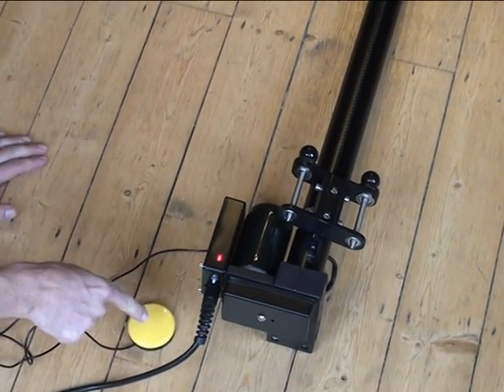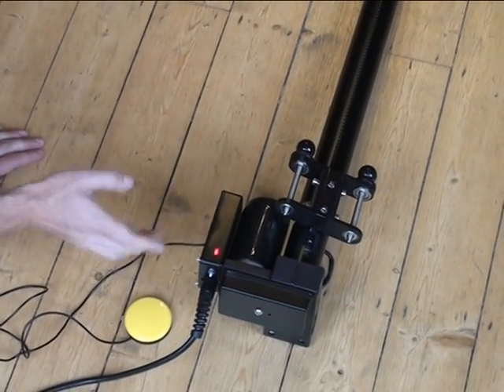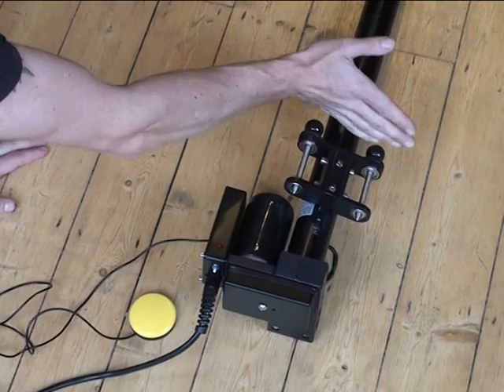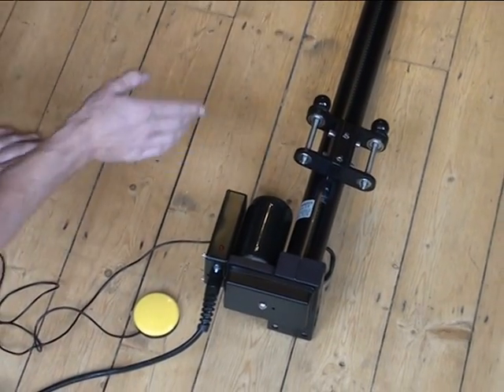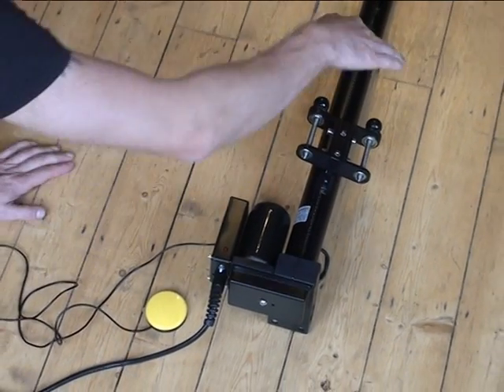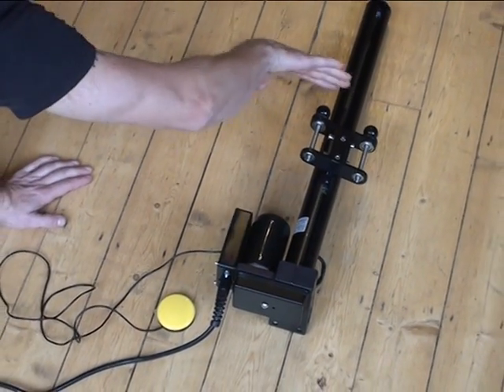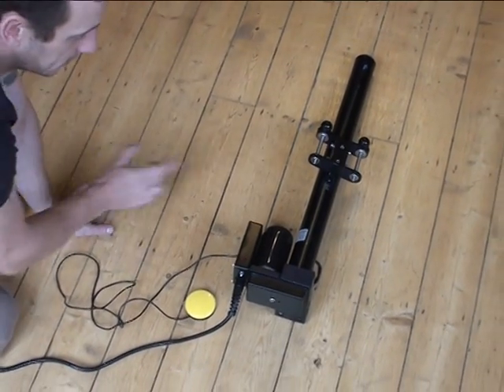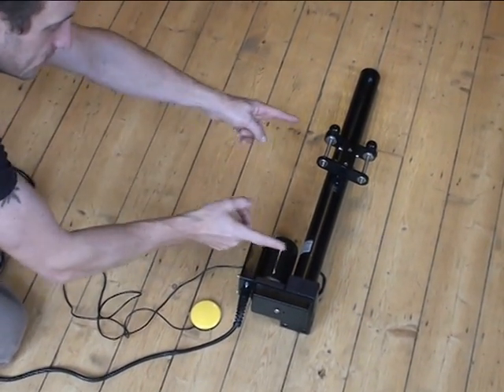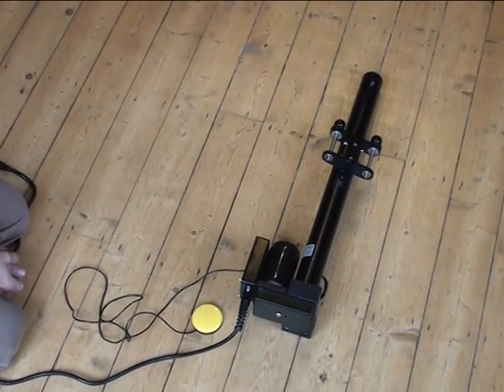Don't press the button while it's calibrating or get anything in the way of the carrier moving up and down, as it will stop the carrier from moving until it's at the top or the bottom and limit the travel of the arm.